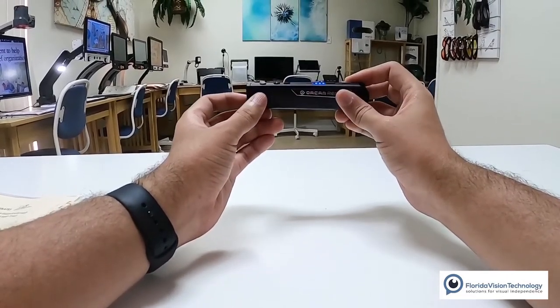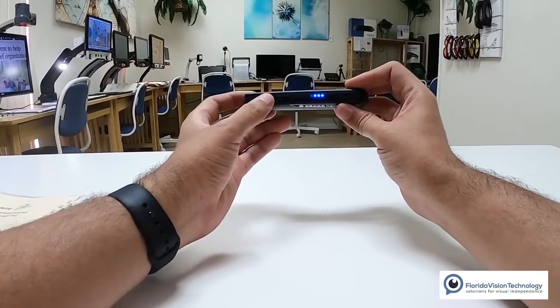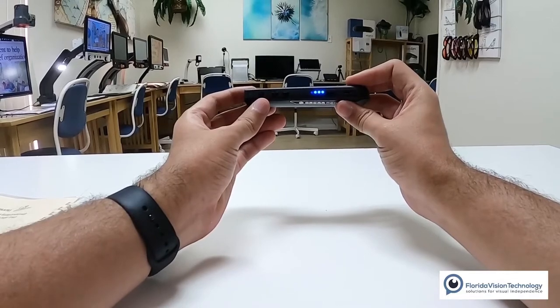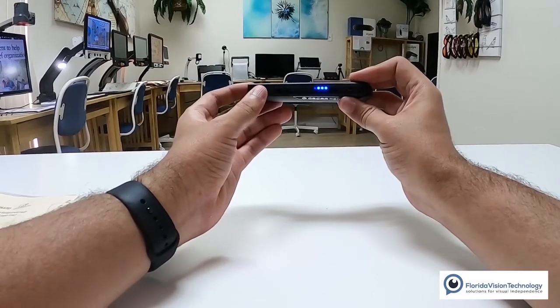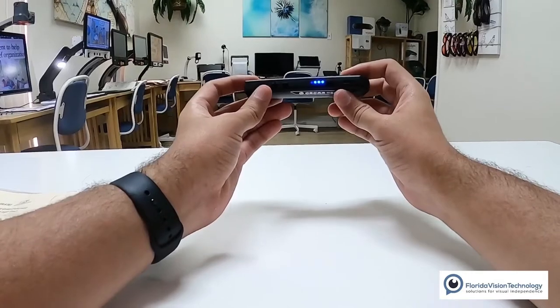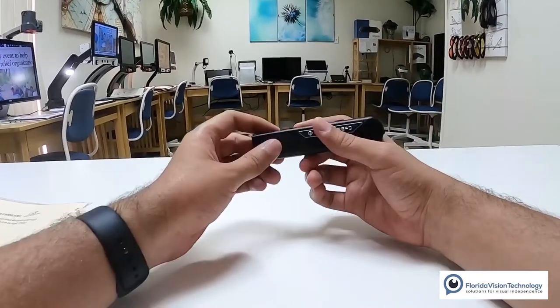I'm just going to wake it up real quick — there we go. As you heard, it made that little noise indicating that I woke up the device. Now let's press that plus button — volume maximum. Okay, so now I know my volume is at max. If I press that minus button — volume down. But I'm going to raise it back up just for recording purposes — volume maximum.